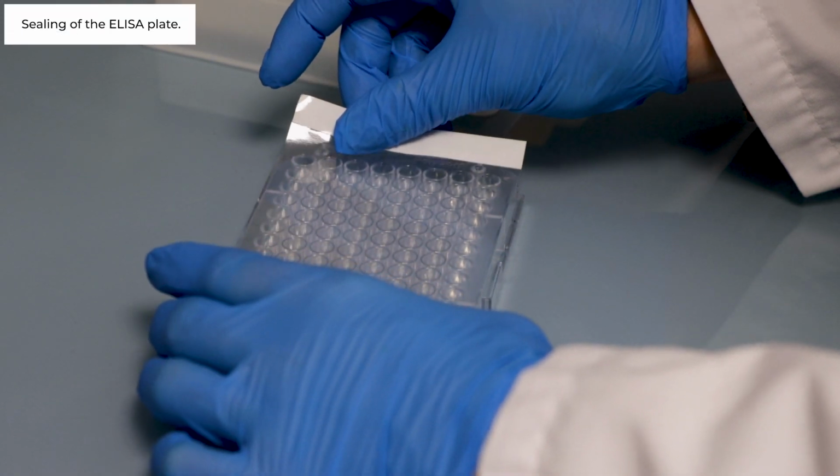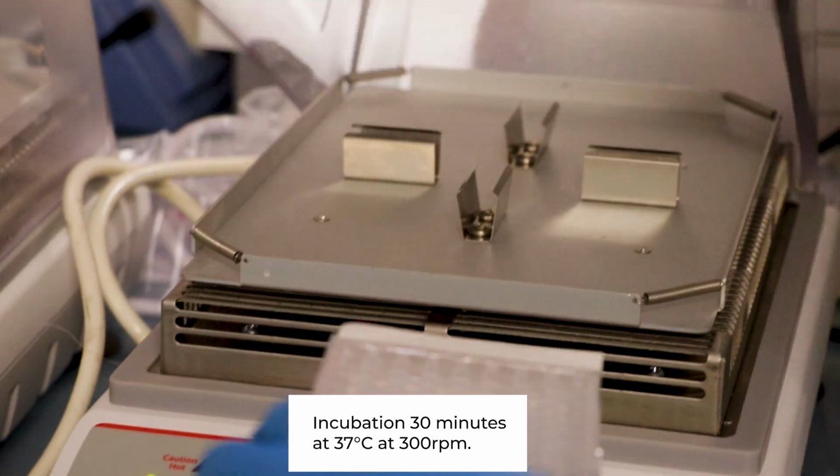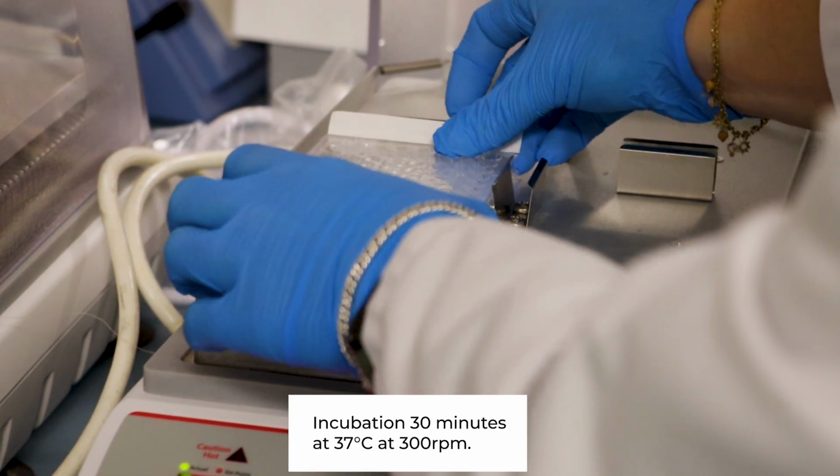Sealing of the ELISA plate and incubation for 30 minutes at 37 Celsius degree, 300 rotations per minute.